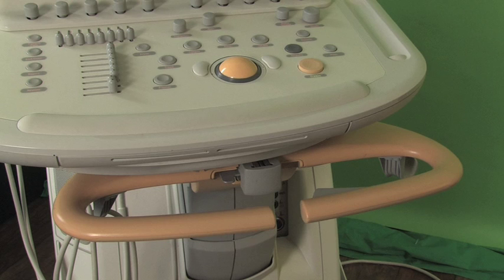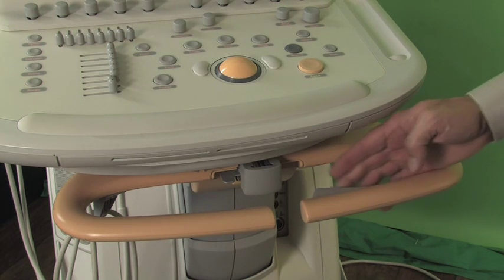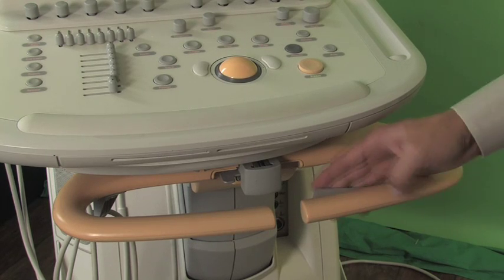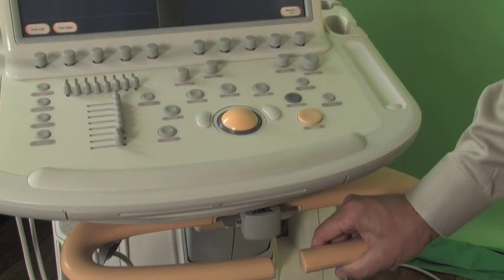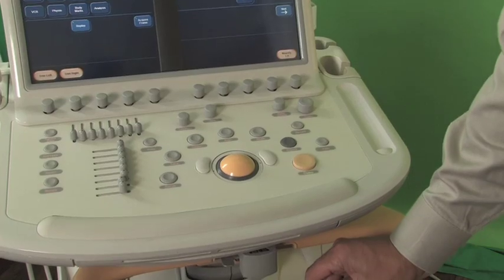First, we'll go through the system ergonomics. First thing we'll see is a handle. On the handle is a button. You push that and you can move the keyboard entirely up and down.